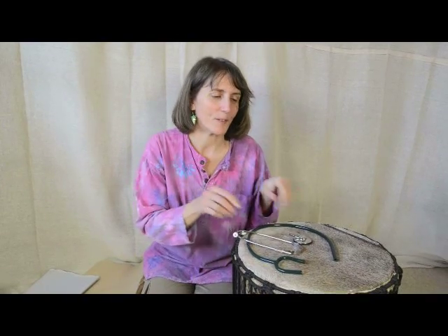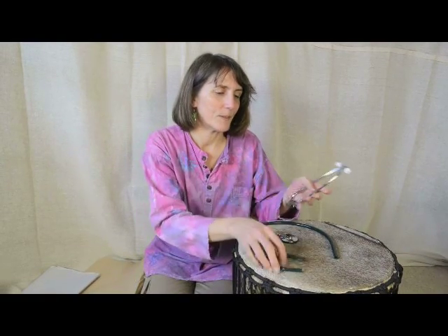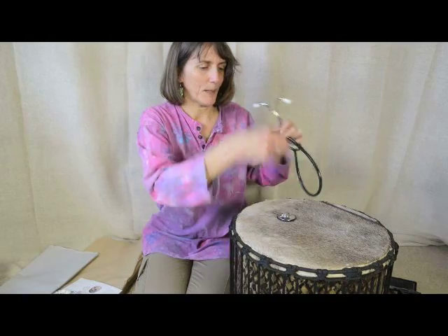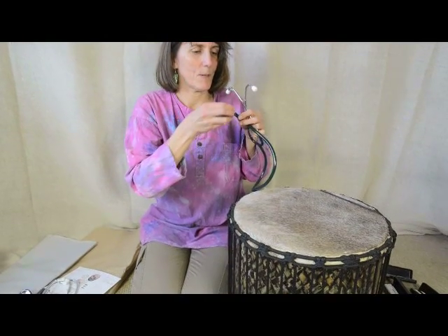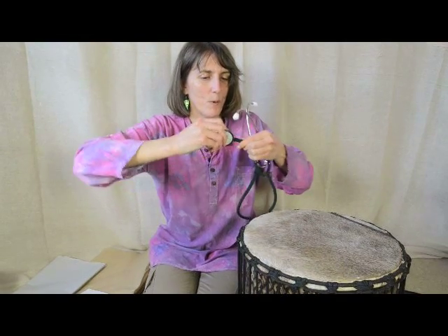I'm just going to show you about the stethoscope. It comes in three bits — it's very obvious but I'll show you anyway. So you put these on the end — I feel like I'm in Blue Peter or something. And this bit goes on this end. It doesn't really matter at what angle you have it because it all works as it is.